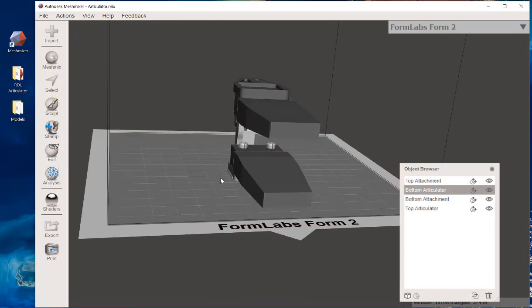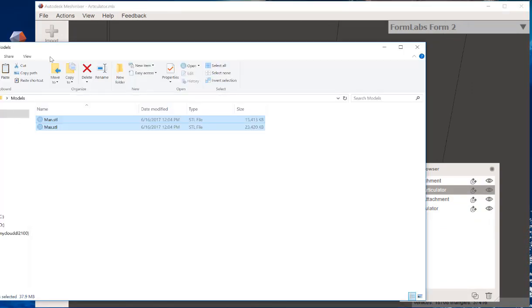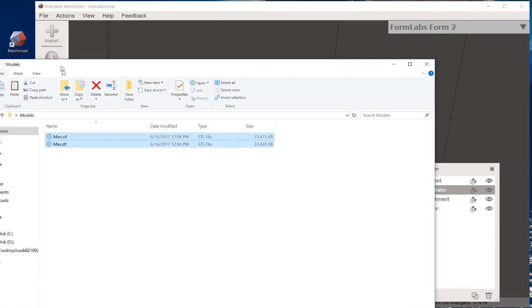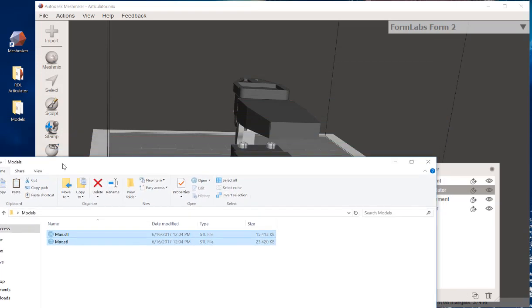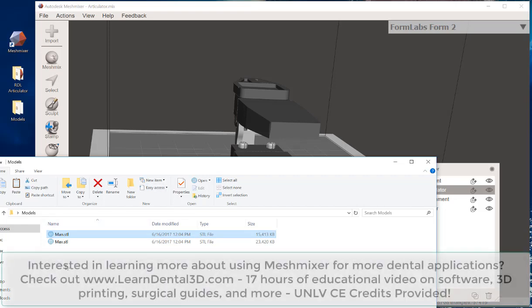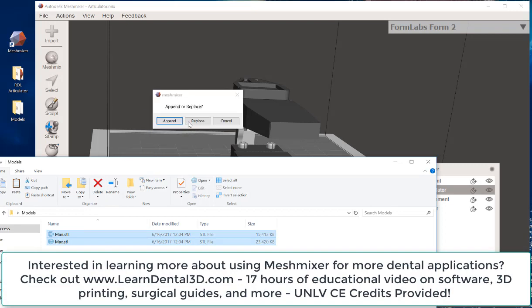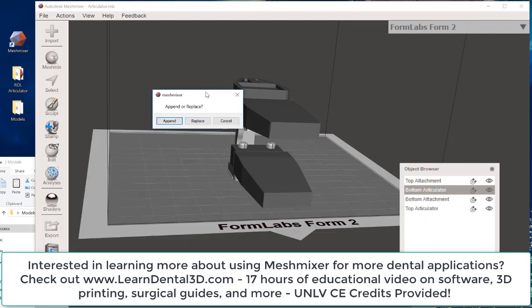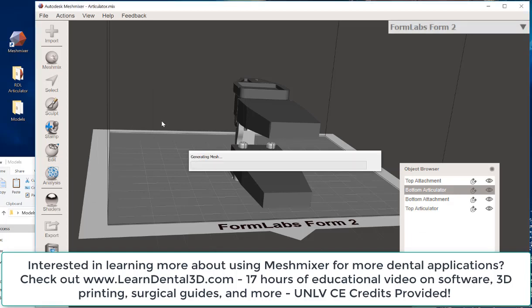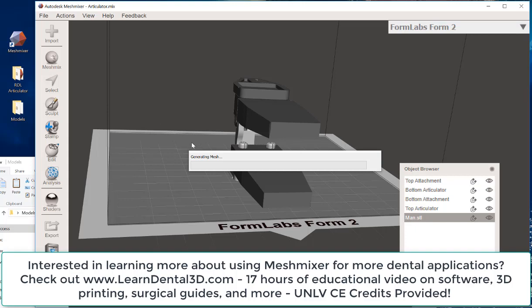Now, the general workflow of what we're going to do is open up my patient scan. My patient scan is raw out of my intraoral scanner. It's usually exported as an STL file, the lower and the upper. All I'm going to do is select both of them, left-click, and drag into my MeshMixer software. It's going to ask me to append or replace. I just click on the append button. And after it's thinking and done thinking, it's going to virtually put my patient's teeth onto the screen.